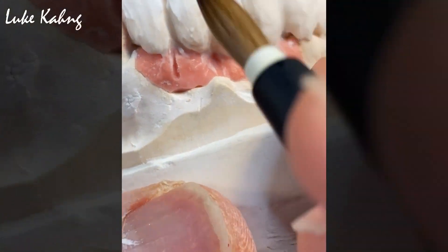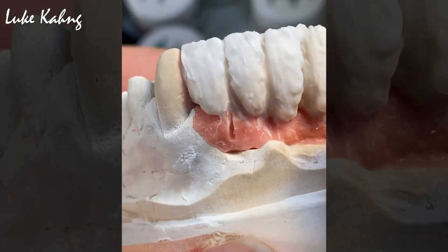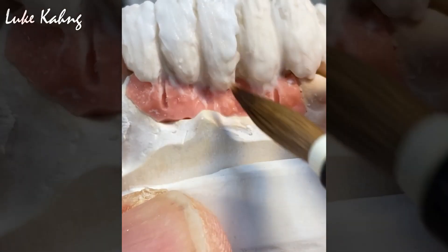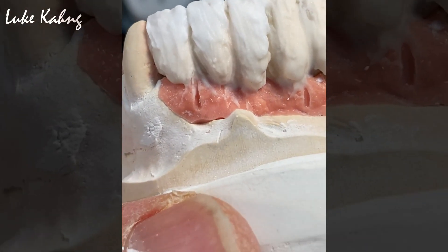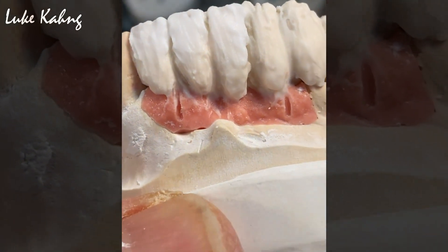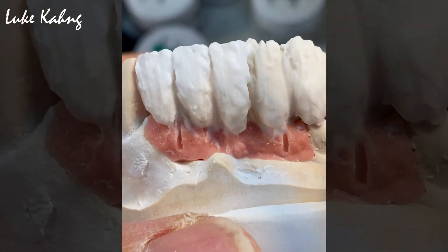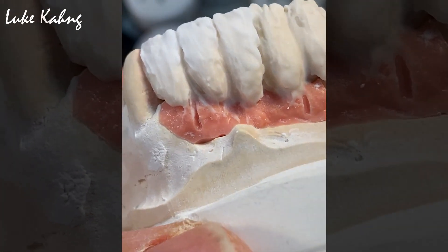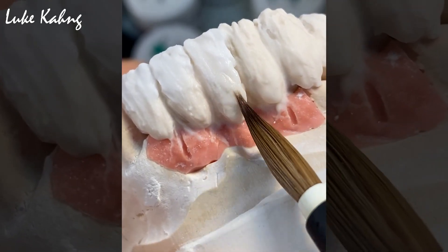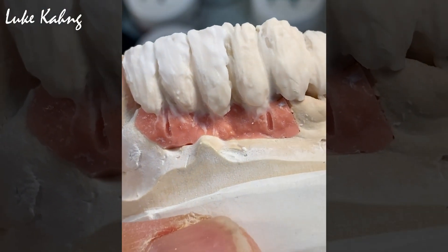Or I have to cut it here. I'm going to contour very well. Here is the triangle. Probably this area will be tissue, which is pink. Just a little bit here too. And also add a bit of black work. This is the bone — lack of bone.